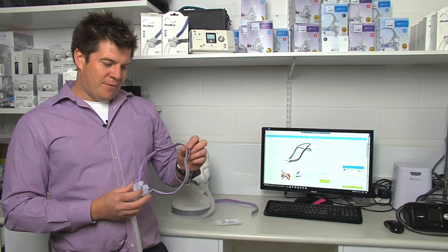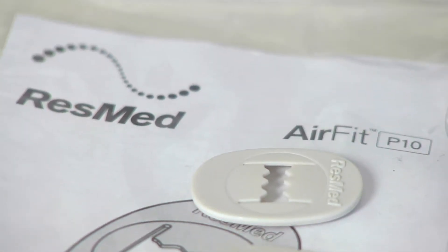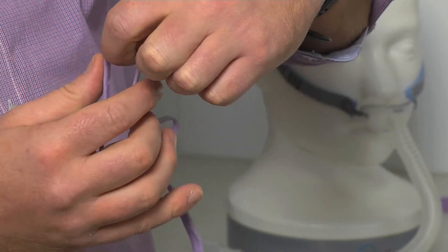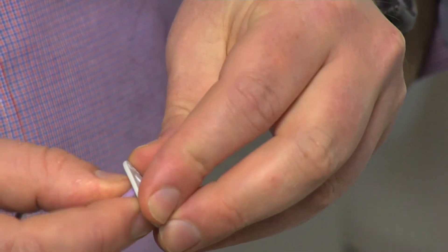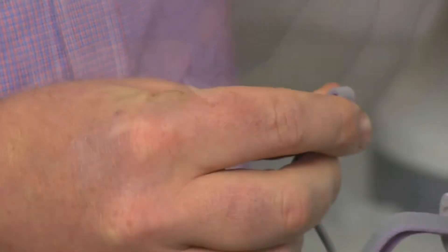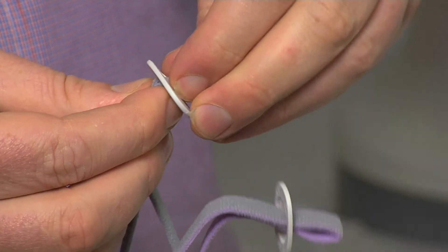What you may find after a couple of months is that the headgear may stretch, but thankfully we now have these clips available which will tighten your mask up. To use these clips, simply get your headgear into a loop and slide that through the clip, pulling it through. And one for the top strap — adjust these clips according to your needs.